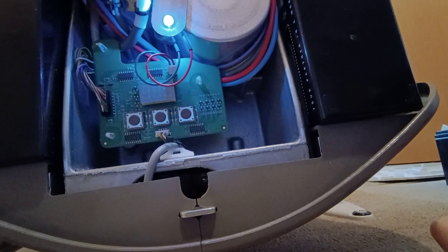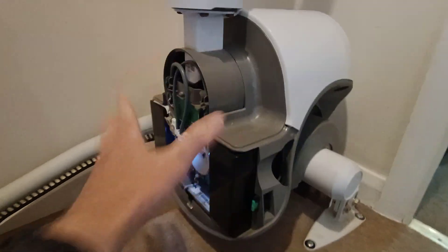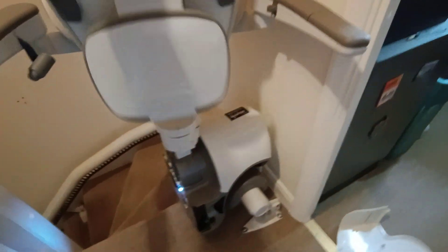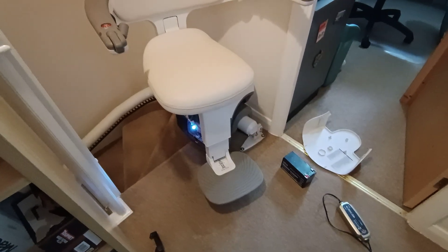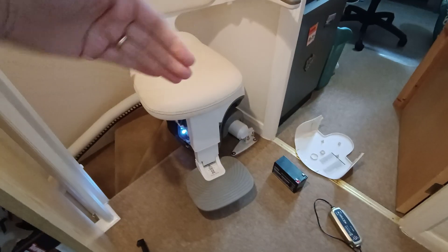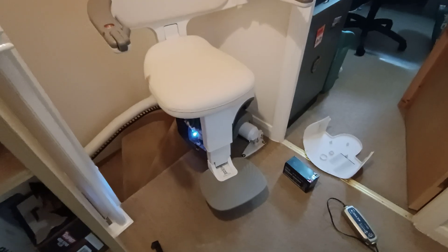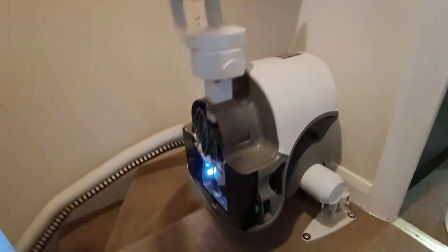If you see the voltage coming lower then that might help your troubleshooting. Another point: if your lift is getting stuck part way up it can be worth running it up and down without the cover on. If you open it up you're not going to hit it accidentally because your feet are around here. This does rotate round and you're still shielded - you're not going to accidentally get your feet on that. But that's your risk to make, I'm not suggesting you necessarily do it. You could run into problems with touching some stuff there.